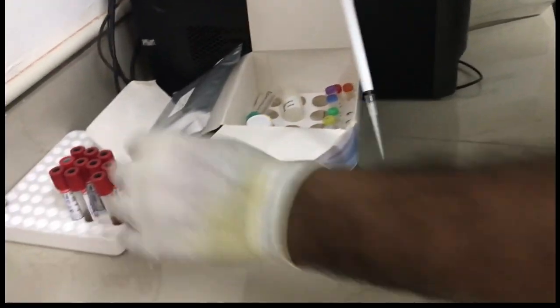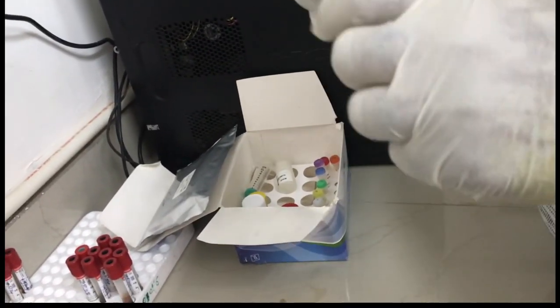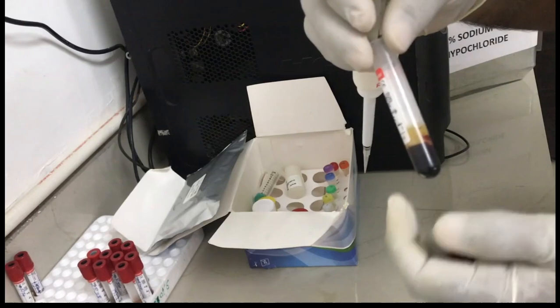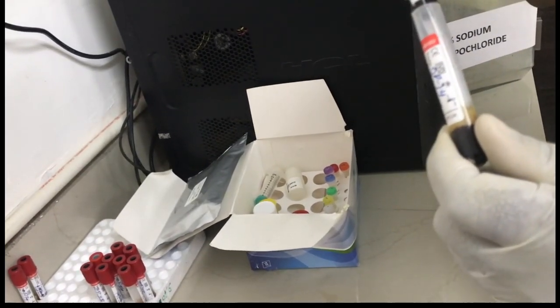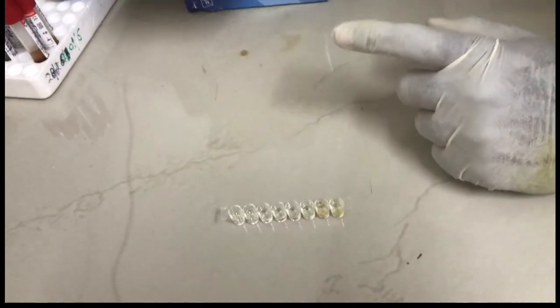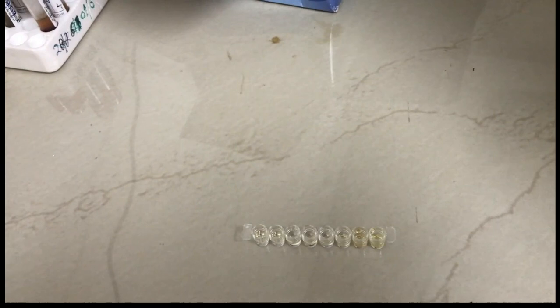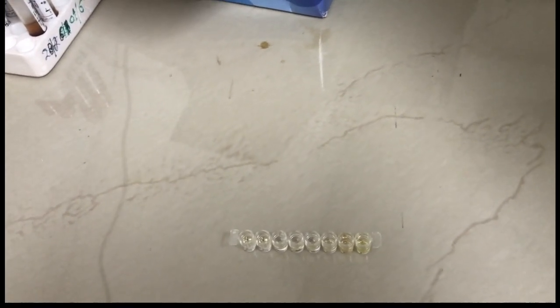Now we are again taking a new tip and a new sample which has to be tested. This is the third sample serum which has been taken and added to the strip, the micro coated strip which has already been coated with TSH antibodies. The principle of finding human TSH level is that the TSH will be sandwiched between two TSH antibodies present in this whole reaction.